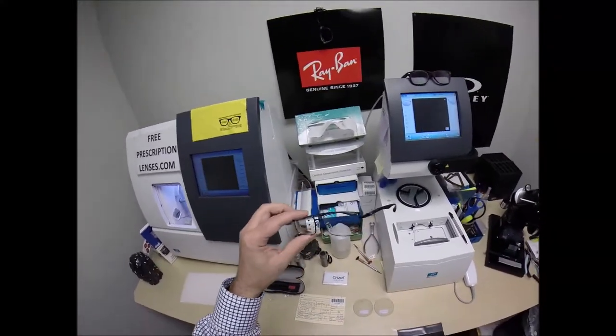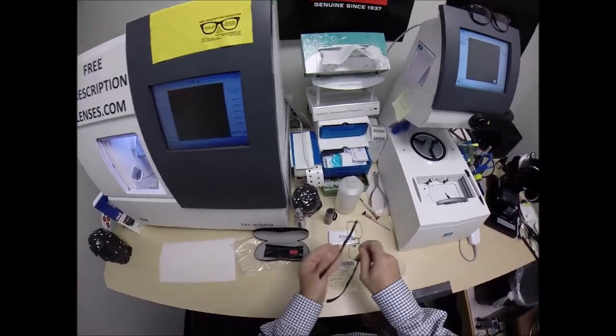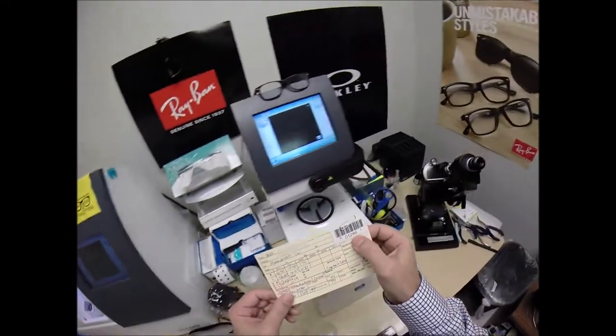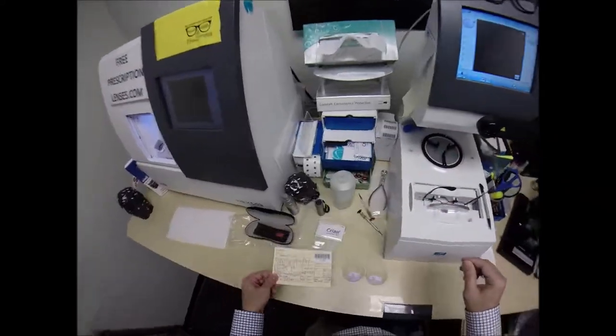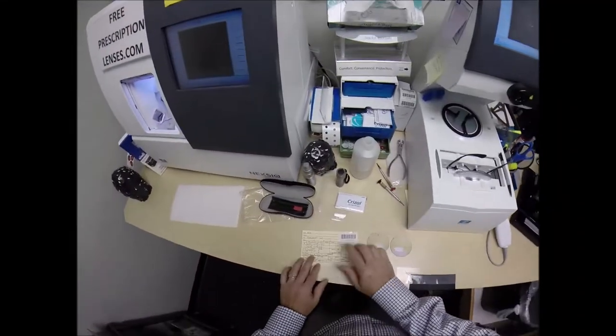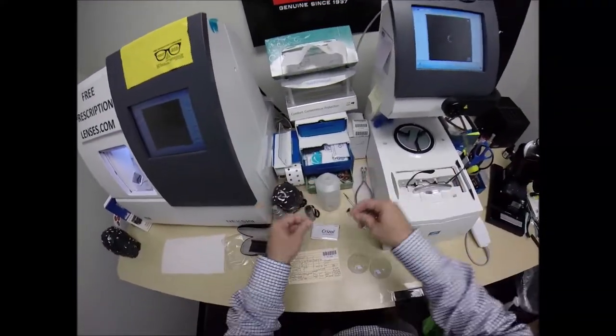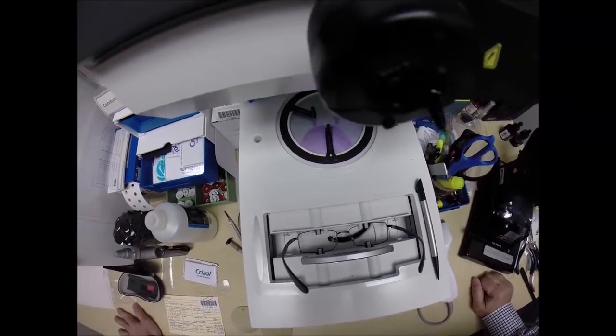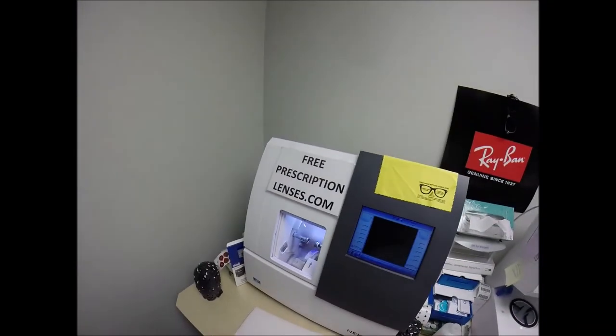Let me begin by taking out the original demo lenses of which you will receive all the manufacturer's original packaging. I'm going to take your frame, put it into the tracing element of my edger. But before I hit start, I want to program the shape into the computer. You are Secret Agent 1286 because years from now, should you ever need new lenses for this frame, I can pull the shape up on the computer and mail you just the lenses cut to the shape that you can install.